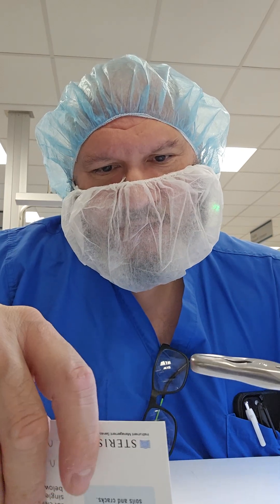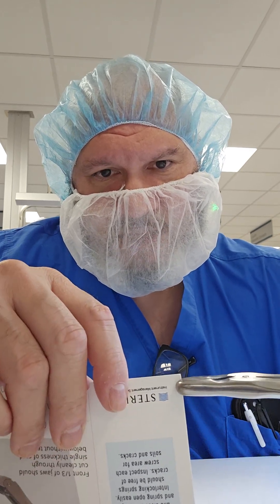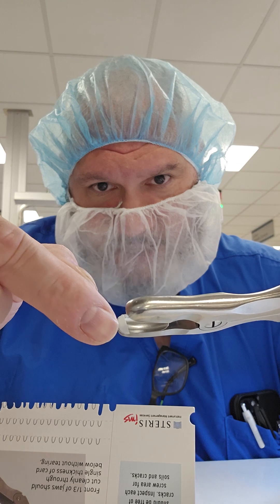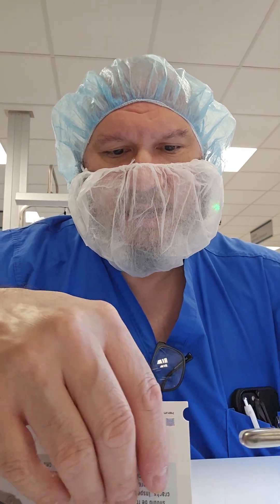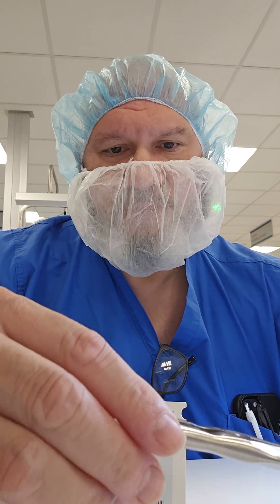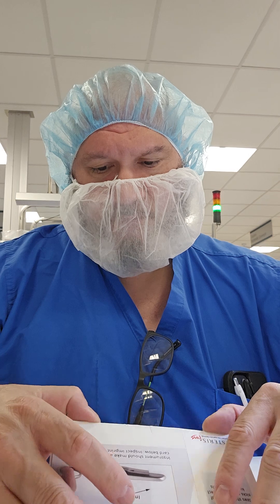Grab the distal tip, apply force using one-third of the jaw — it should sound like a hole puncher. After punching, gently tap the card because the cut-out may be stuck in the jaw; remove it and discard it. There are often small filaments left behind, so gather those as well. Do this a couple of times, confirm a nice clean cut, gather your material, wipe the jaw blades, and it's good to go.